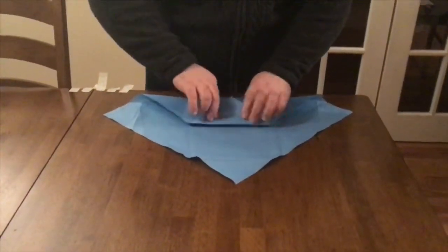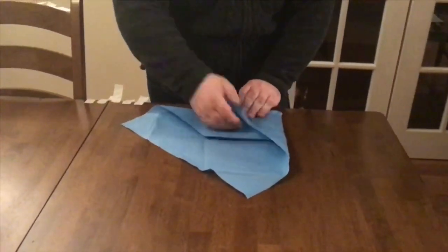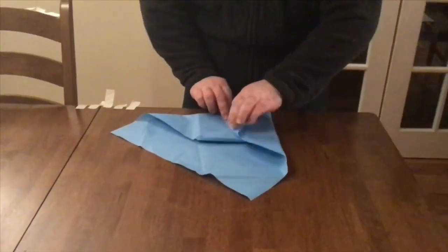The sterilization wrapper is used to maintain the sterility of the enveloped device until it is opened. Choose a sterilization wrapper that can wrap the device, preventing gaps or air pockets.